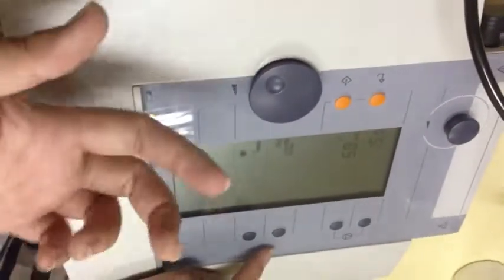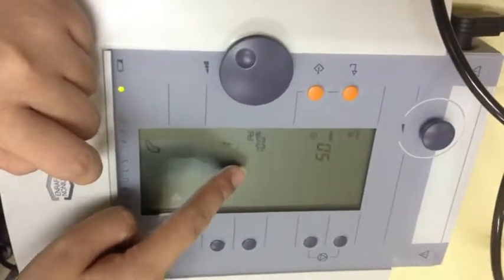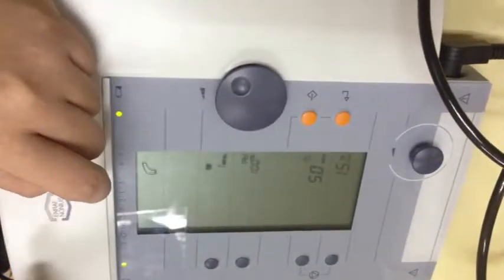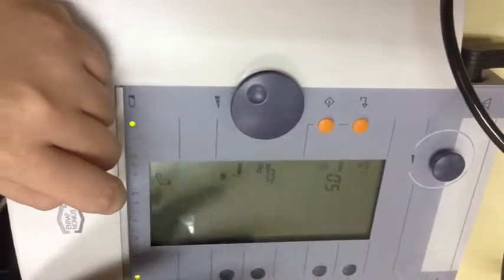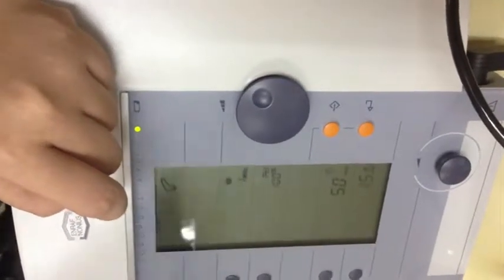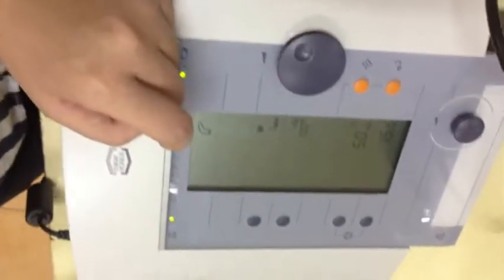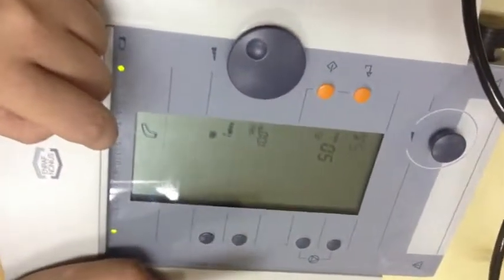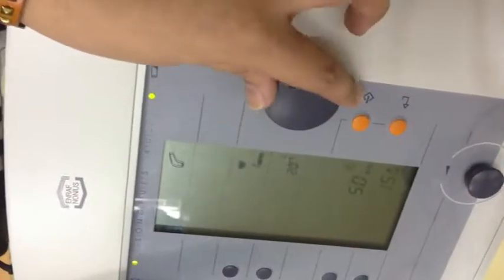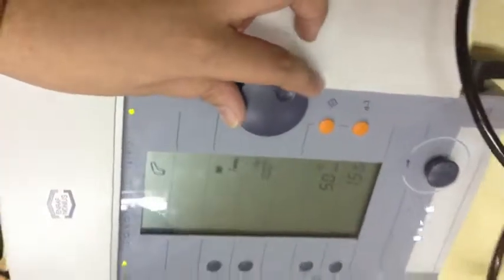Okay, and then for example, yung sa pangalawang option, you have your duty cycle. So, nakalagay dito 100%. So, pag 100%, that is your continuous ultrasound. Okay? So, again, dito, pwede natin palitan yung duty cycle niya. So, for example, the case is acute. Okay? Again, we don't want thermal effect. So, gusto natin intermittent or pulsed yung ultrasound natin. So, you press the selection button nakatapat nung duty cycle, and then pwede mo siyang i-adjust to 10%, 20%, 50, 80, 100.